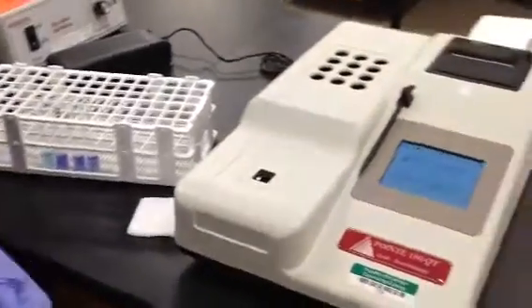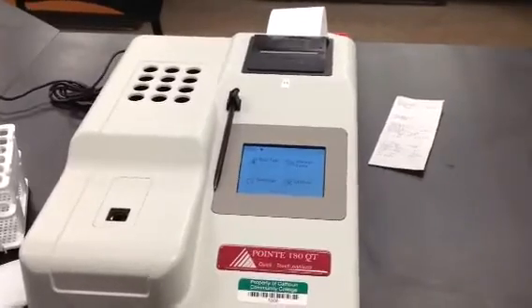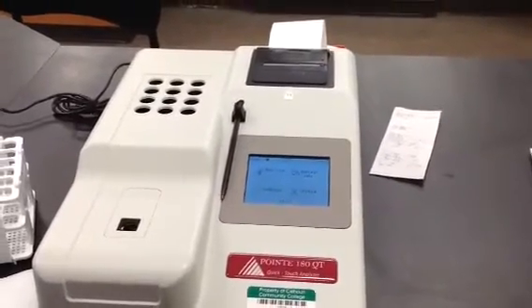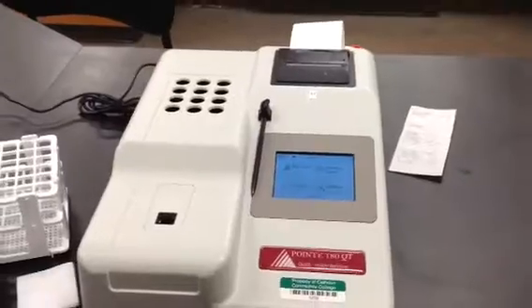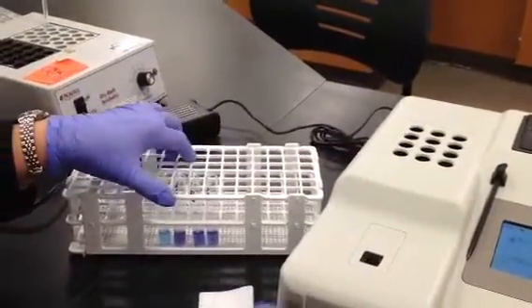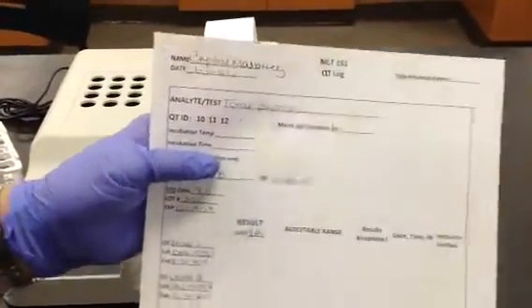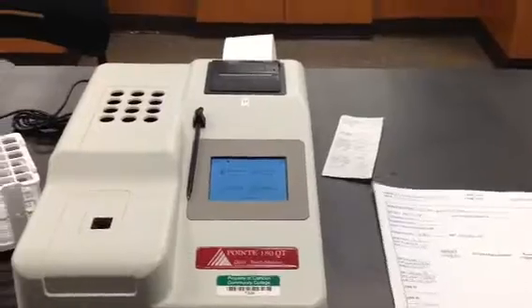Now we're going to read our samples on our QT. Setup for manual chemistries is the same as with the other recording. I will need to bring my samples along with a little bit of gauze and my QT worksheet to my spec.